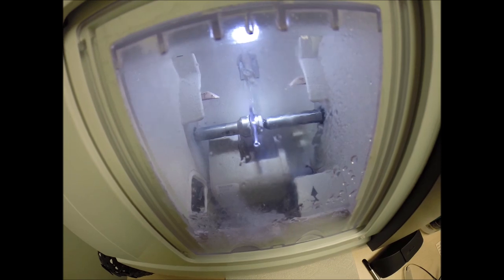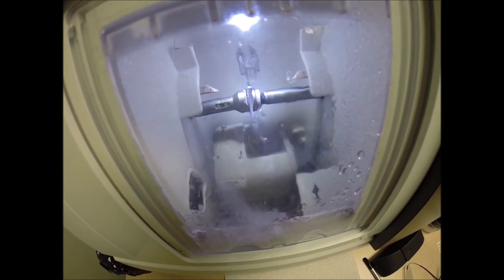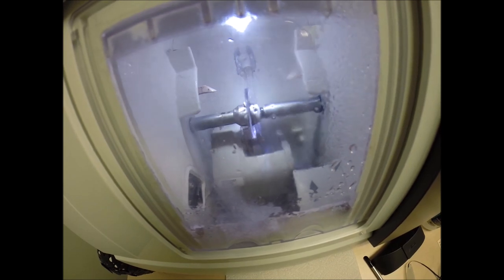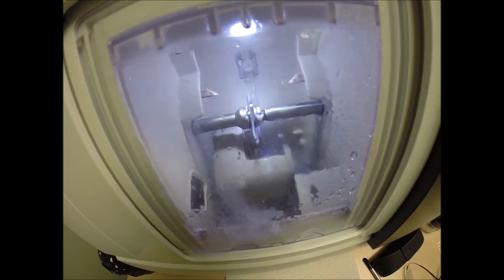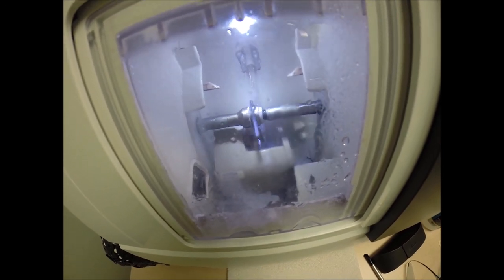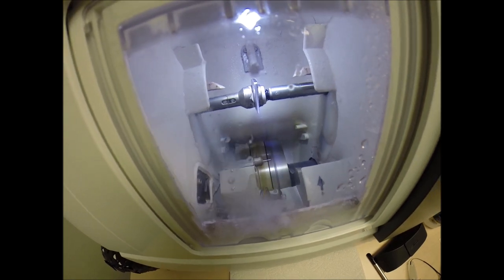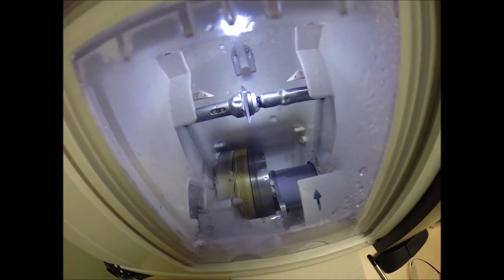Then it moves ever so slightly and does the same thing on the rear concave surface of the lens — a slightly heavier version. So should any portion of that lens come into contact with your face when you're wrestling, roughhousing, getting a big hug, or falling asleep on the couch, there will be no rough edges to come in contact with your face.